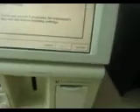This is the paper, and then to put the cassettes on the side, that's where the cassette goes.